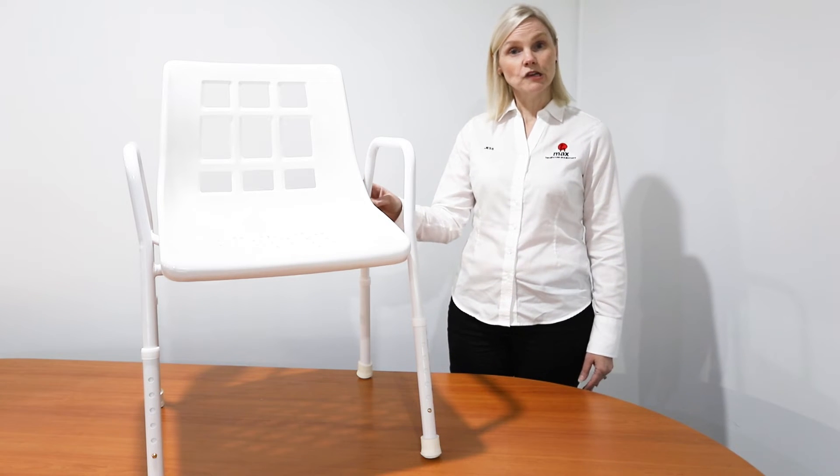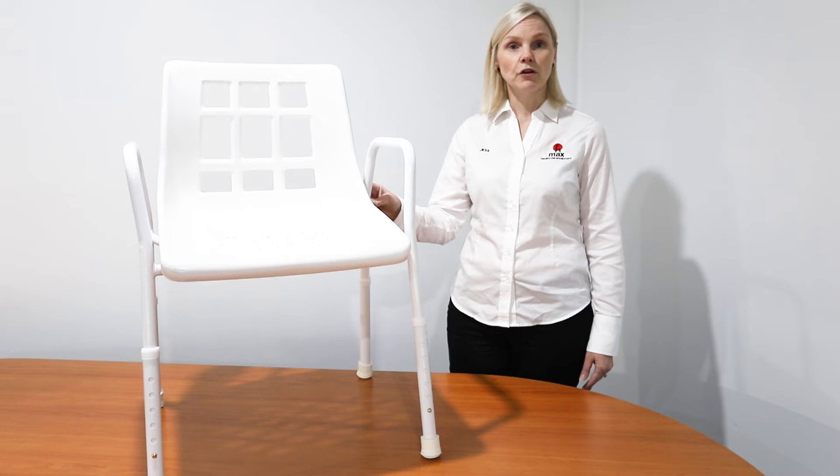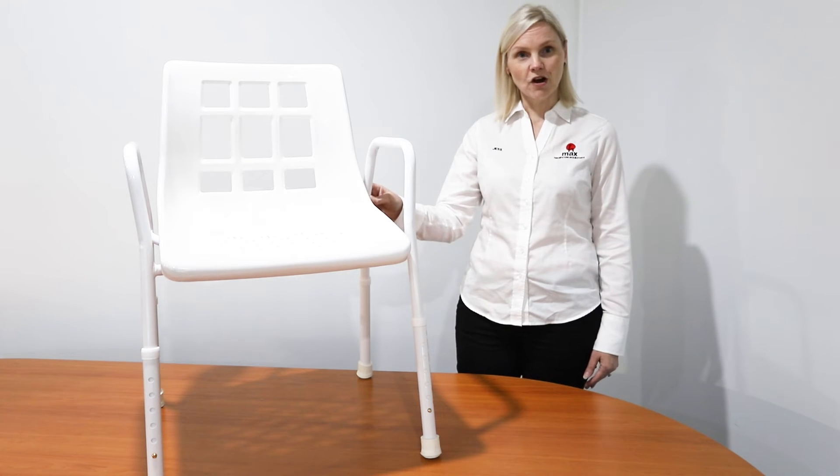The seat height can also be adjusted from 410 to 535 millimeters, so it's suitable for various patient heights.